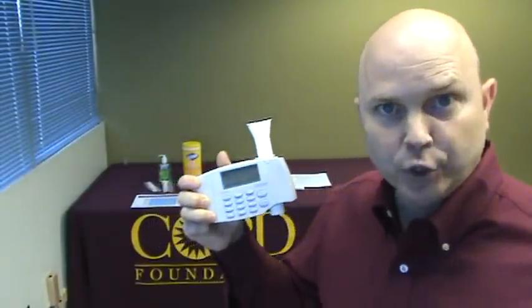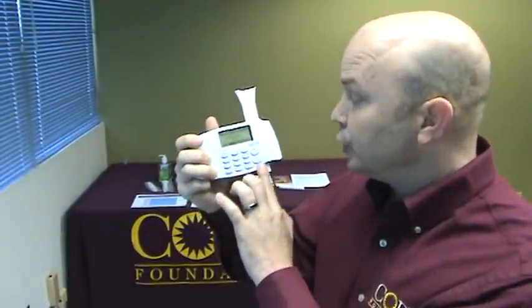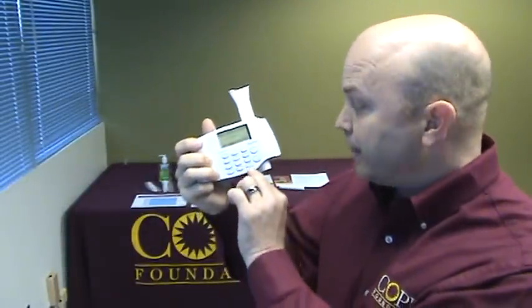If you have done several maneuvers and you don't reach an A or B in session quality, you can manually stop by pressing escape and then going to the data screen to look at the results. However, if you receive a grade quality of D or F, we do not report that data. We don't write it down on the sheet and send them away with it. We simply let them know we are not able to get a good quality test today. Thank you for trying. If they have questions about their lung health — especially if they had a symptom score of five or more — let them know they need to follow up with their doctor and get a spirometry test in their office environment.